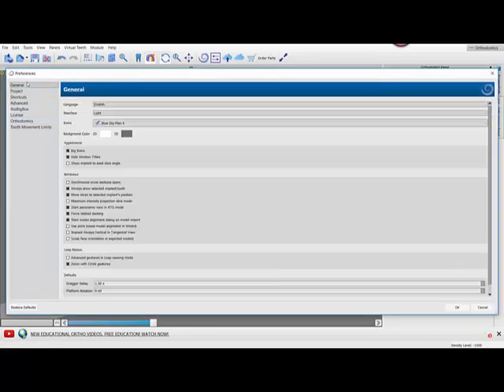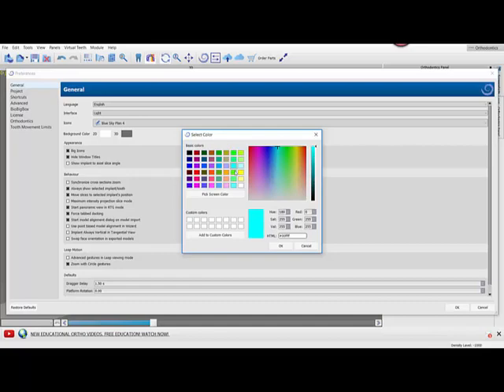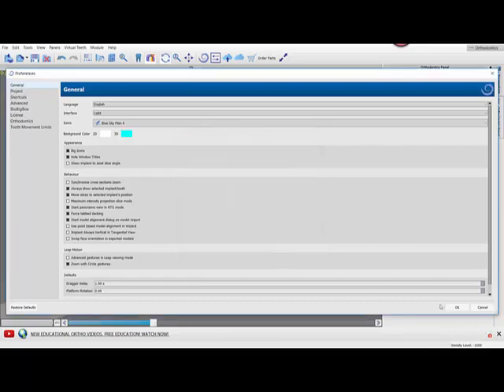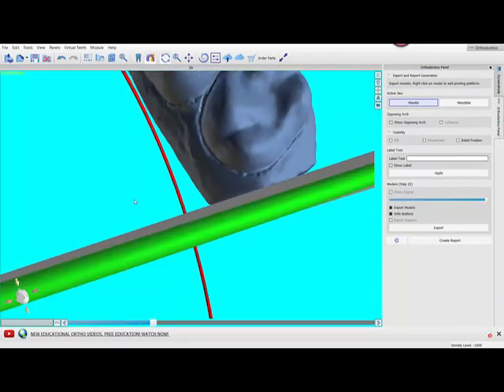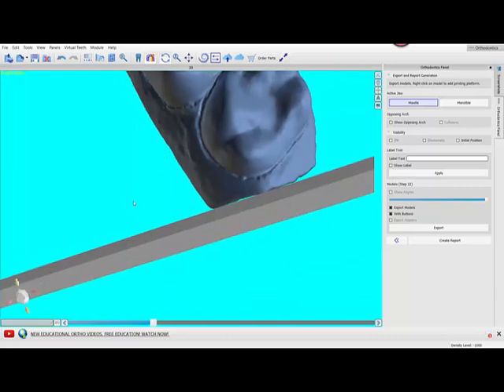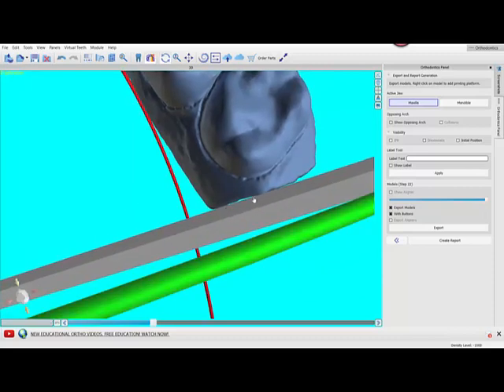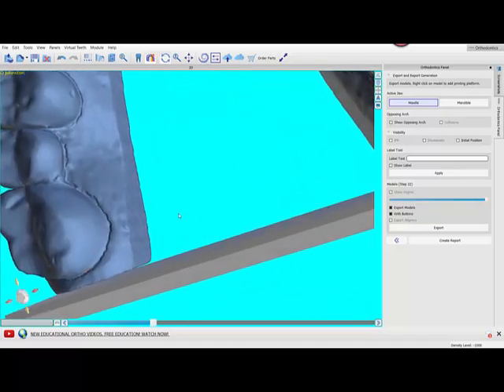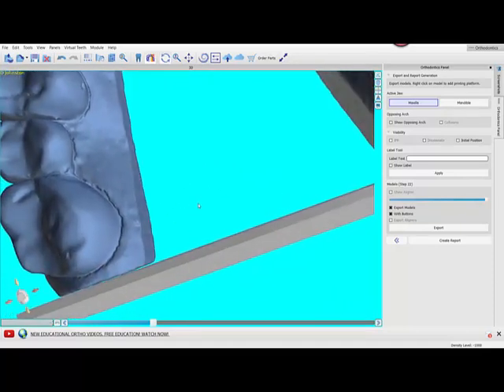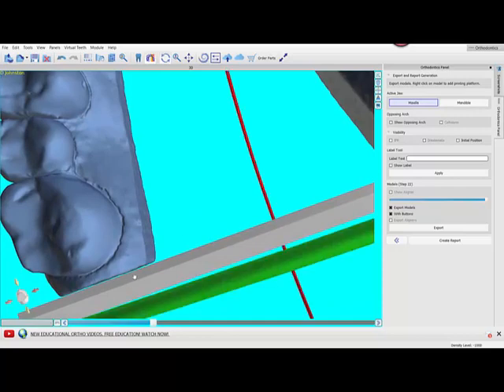Let's change it to something super obvious. Now you can really see that space that shows up. This might be okay because the resin when you're printing may actually end up occupying that space and still leave it attached, but it's a risk and you can see the space through here.